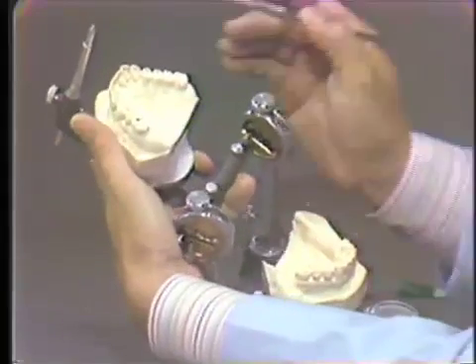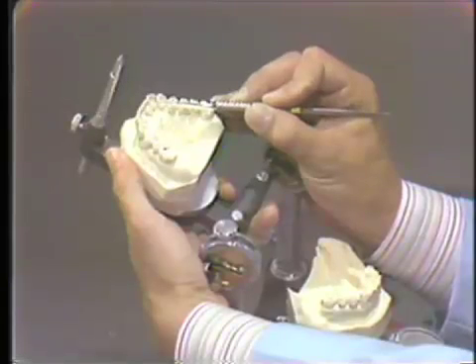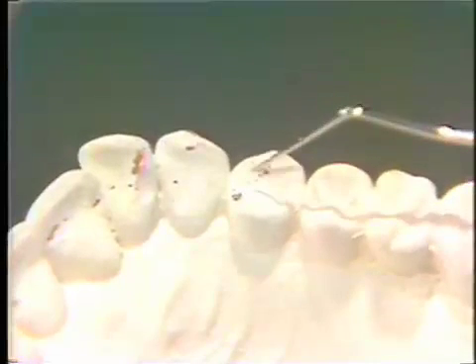Looking at the excursion to the opposite side, we again see a mark in the lateral area, but examining the occlusion for that side, we don't see much else in the way of a lateral excursion. This tooth is extremely mobile in the patient, and so the lateral excursion of this side is being borne almost in its entirety by this lateral incisor — a weak tooth from a periodontal standpoint. In preparing for the restorative procedure, we should reduce this somewhat to pick up guidances on the adjacent cuspid and possibly bicuspid, and relieve this lateral mark.